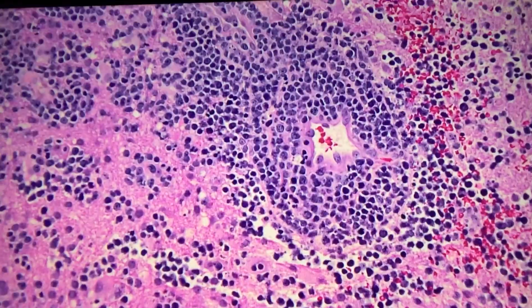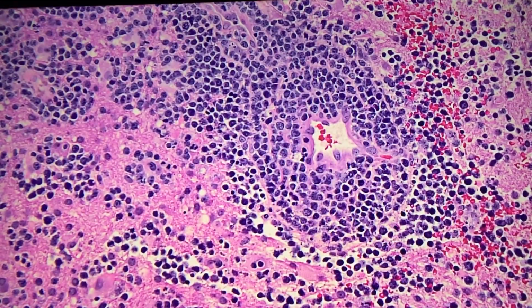So what about this? Can we immediately say this is something malignant? Necrosis. It's just destroying the wall structure. Mhm. The cells are pretty big, right? They don't look like lymphocytes, and if they're small round blue cells that are not lymphocytes, it's going to be something bad.